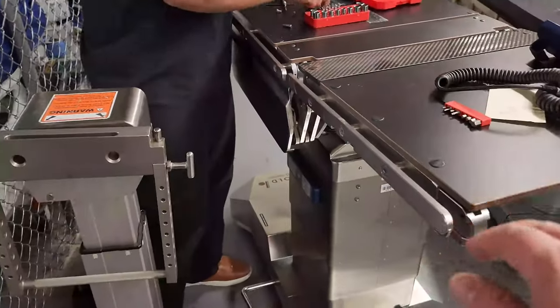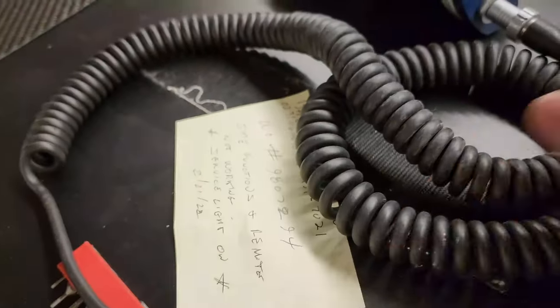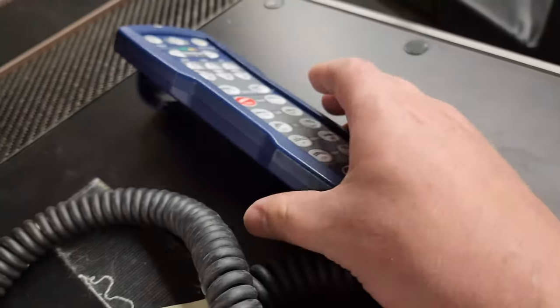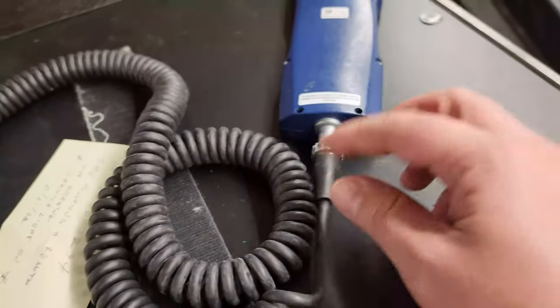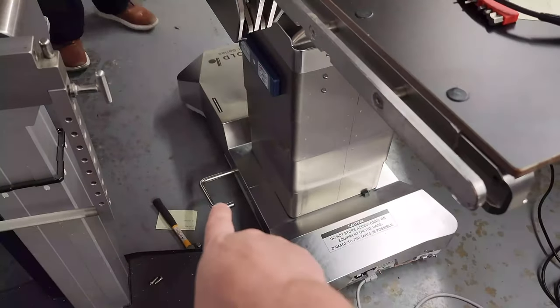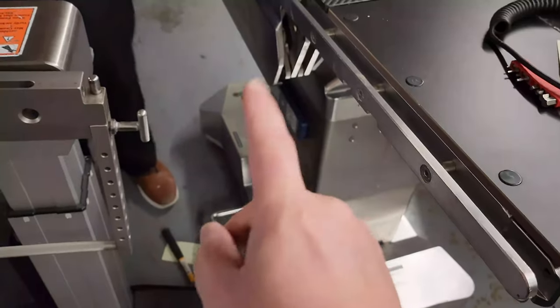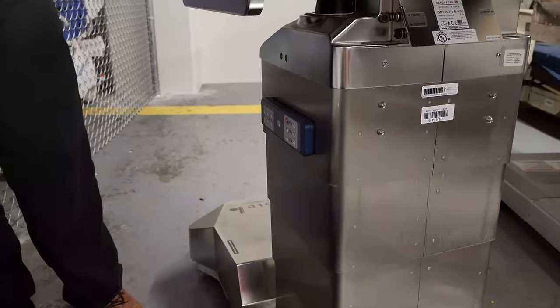We have a Berchtold Operon table right here. This table had a problem in the cord. These remotes have a lock collar — if you loosen up the set screw you can remove the cord from the remote. The remote itself is fine, it just gets shorts right where the soft material meets the rigid material — that's always where you'll expect problems. The other complaint is that the side controls don't function well, but normally this handle is your emergency mode: you pull it out and it becomes a manual hydraulic pump.